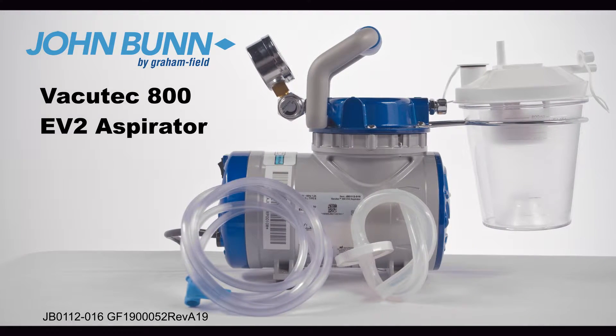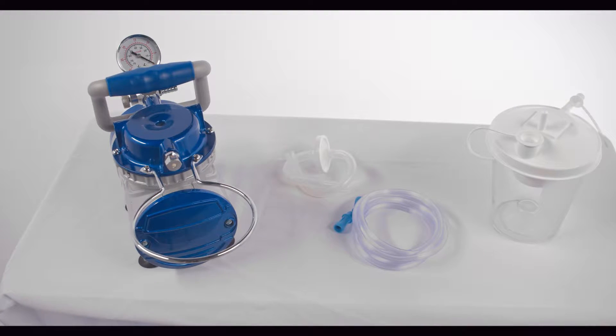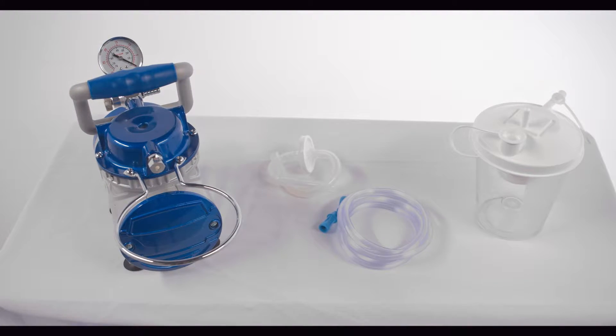Introducing the John Bunn VacuTech 800 EV2 aspirator. Today we're going to show you how to set up the aspirator for tracheal and oral suction.